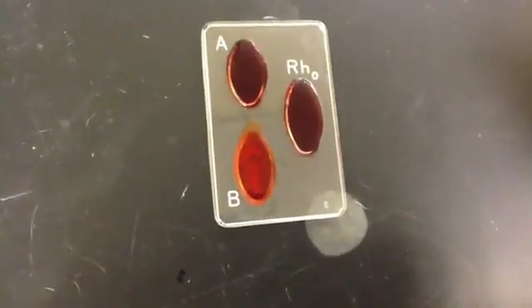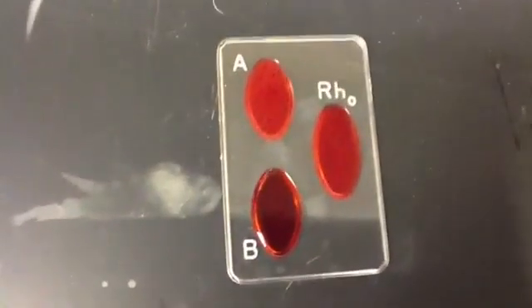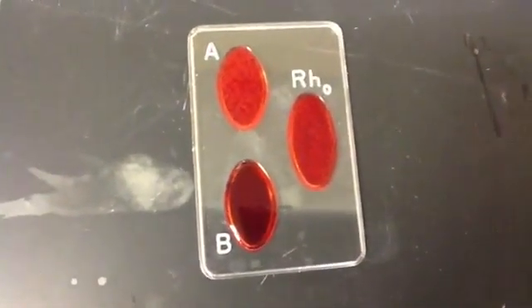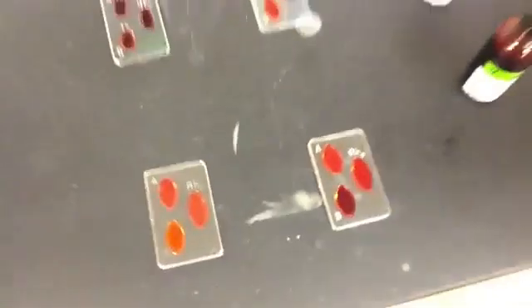This same technique can be used to analyze the blood type of other individuals.